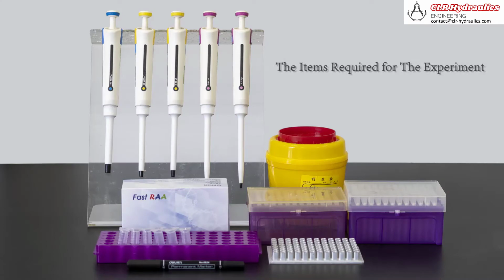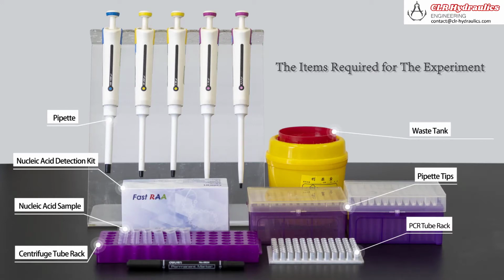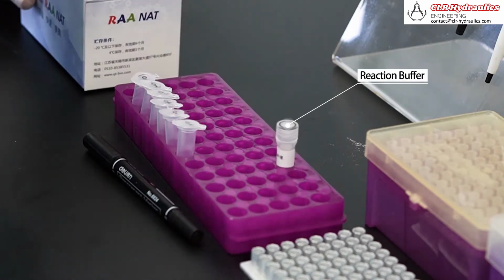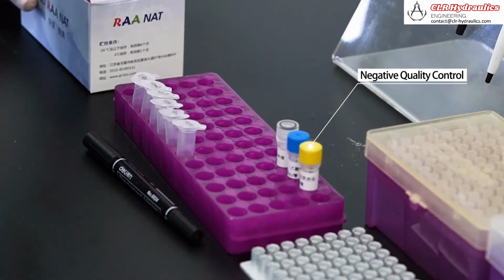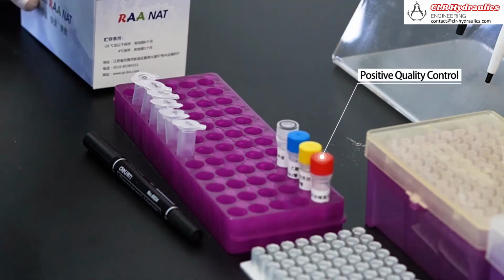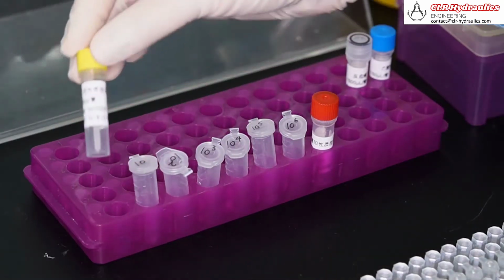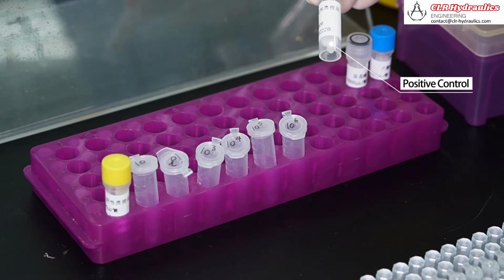The items required for the experiment include nucleic acid sample, nucleic acid detection kit, centrifuge tube rack, PCR tube rack, pipette, pipette tips, and waste tank. The nucleic acid detection kit provides reaction buffer, magnesium acetate, negative quality control, positive quality control, enzyme reaction unit. Experimental settings were negative control, nucleic acid sample to be tested, positive control.